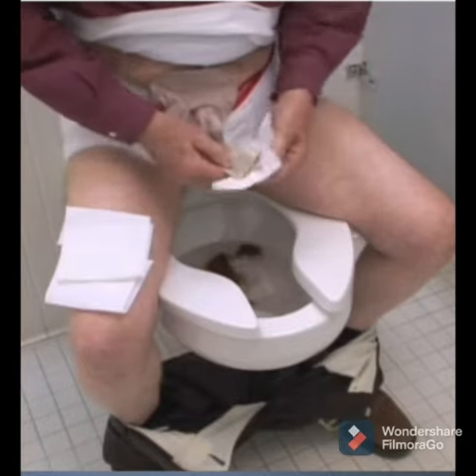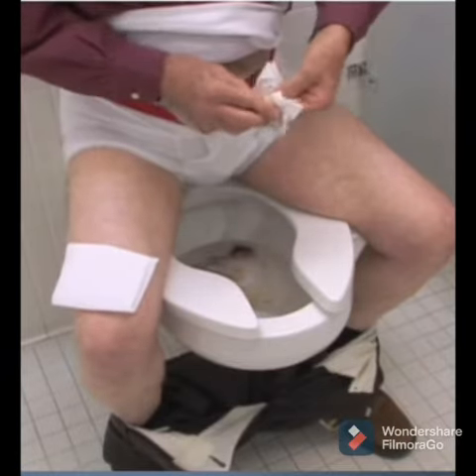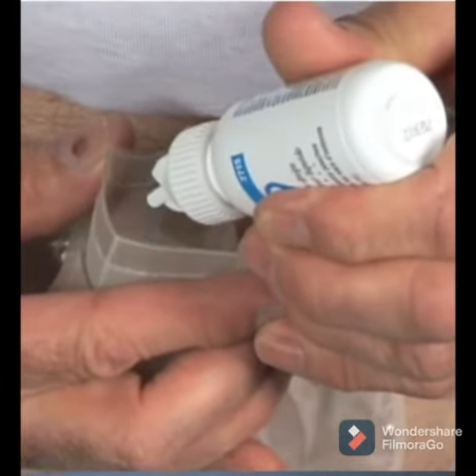One may also use tissue paper to reduce the splash effect, and also clean it inside and out before closing it. One can also use a pouch deodorant to reduce the odor.